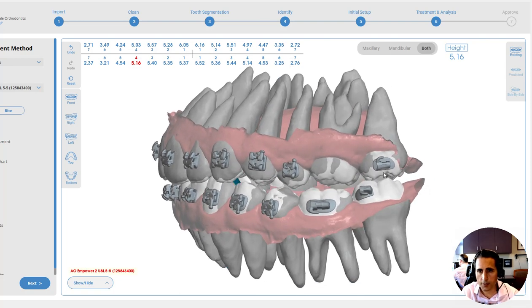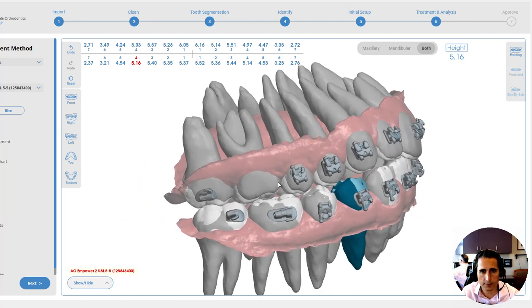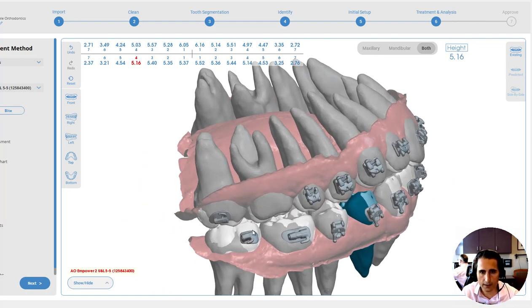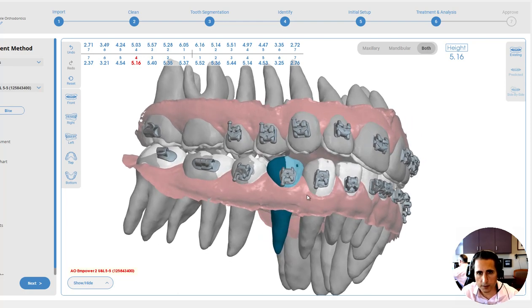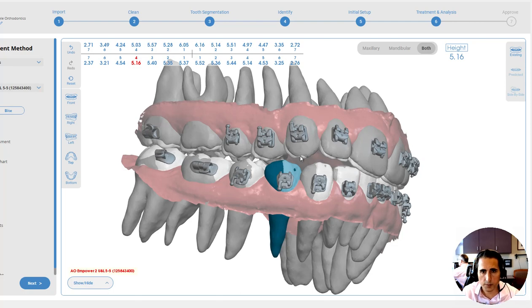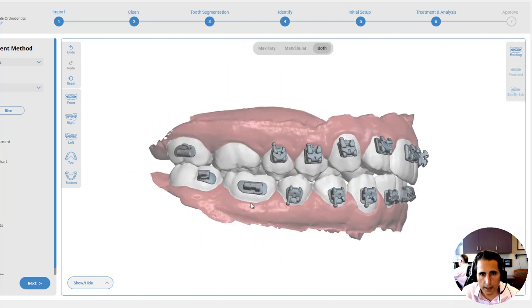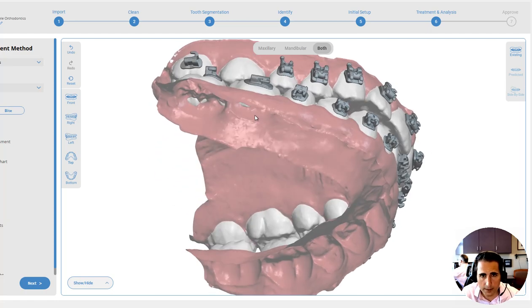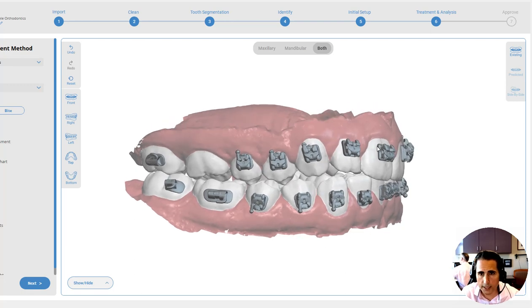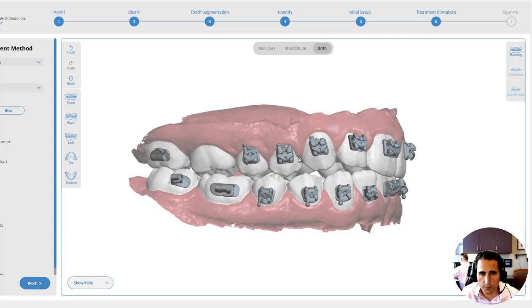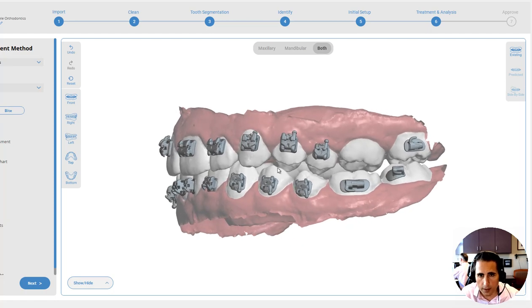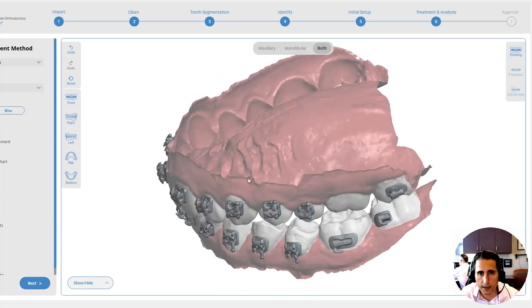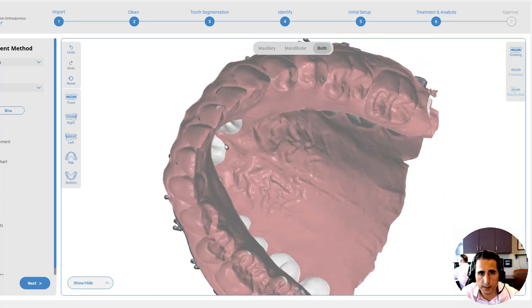Generally, these second molars are going to tip back. Your prescription will have the upper root tipped forward and the lower root typically tipped back, because we tend to see a natural curve of Spee at the area of the sevens. If you put the bracket in the right spot, you'll see that the tube is offset to give that distal root tip and mesial crown tip for those sevens to occlude better. We're also going to be doing an expander, so there will be bands on the sixes. Double check if you use multiple bracket systems — these are clear brackets, so make sure the file is correct for the patient's desired choice. The subgingival depth is less than a half a millimeter, so that's going to be fine.